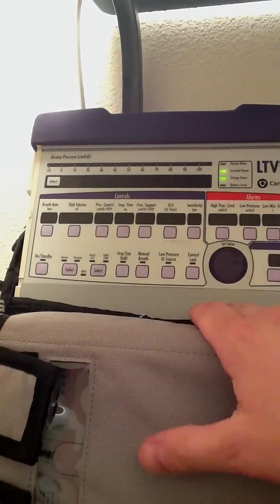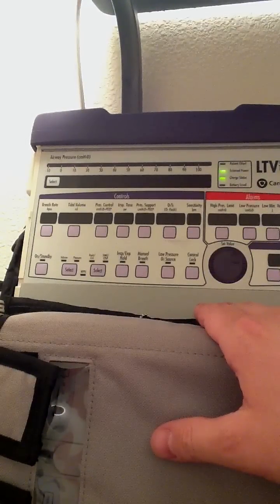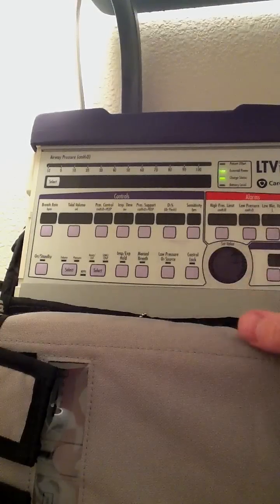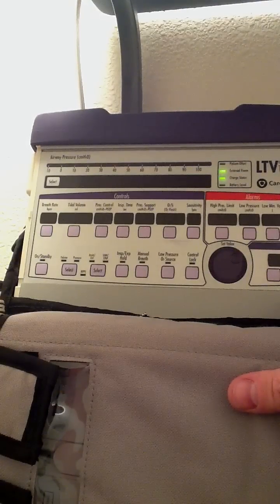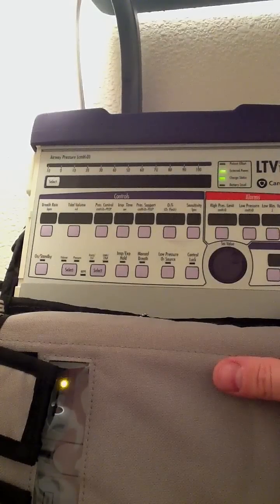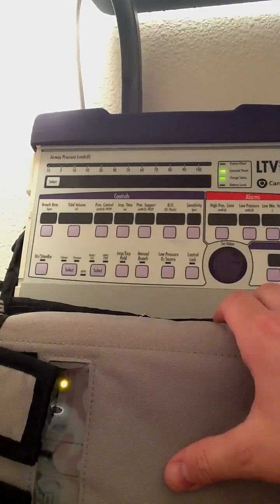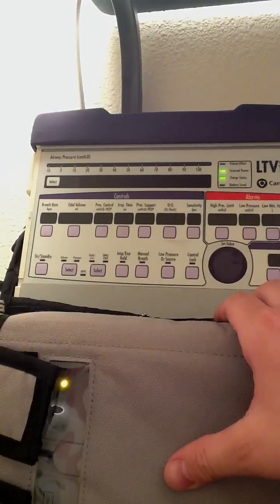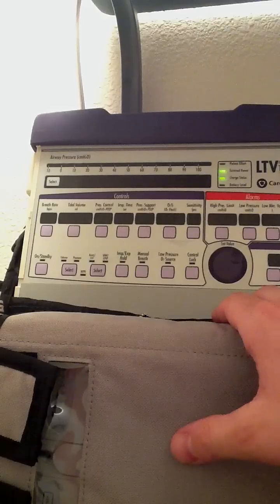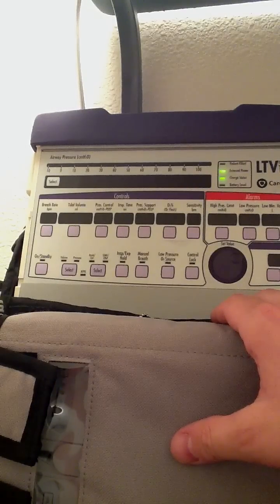This ventilator has its own compressor — it doesn't necessarily need a compressed oxygen gas source to run. In fact, all of the stuff that I'll be doing on this ventilator today will be done on room air. It has a very effective compressor; I believe it can deliver up to something like 120 liters per minute of flow on its own.